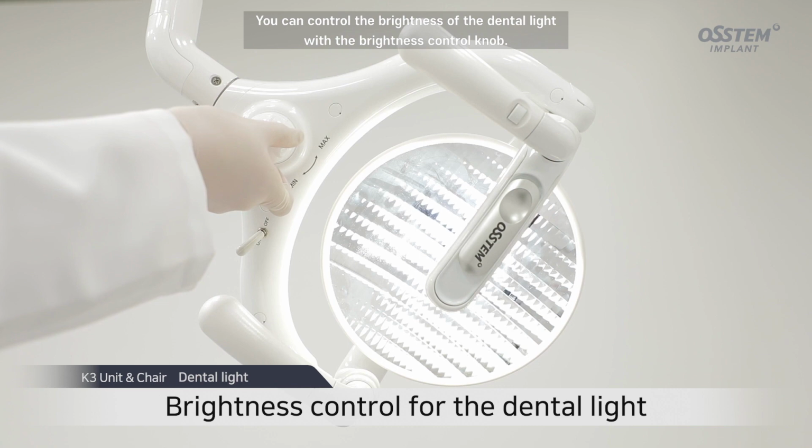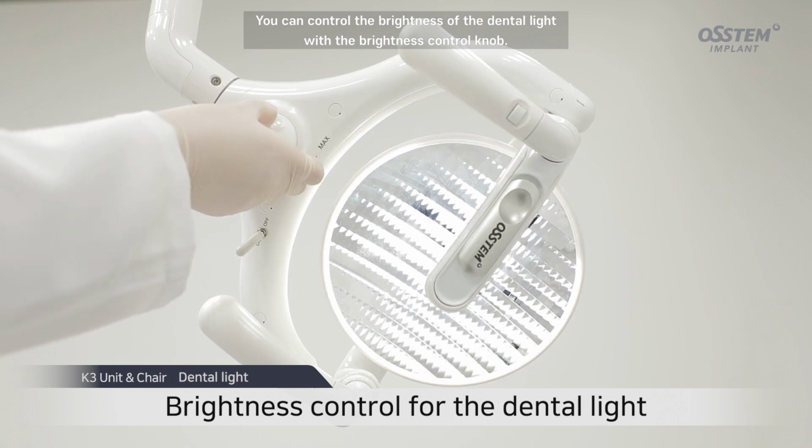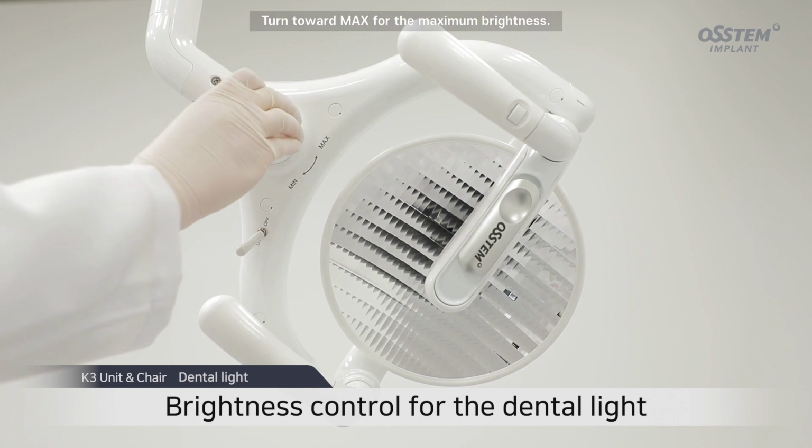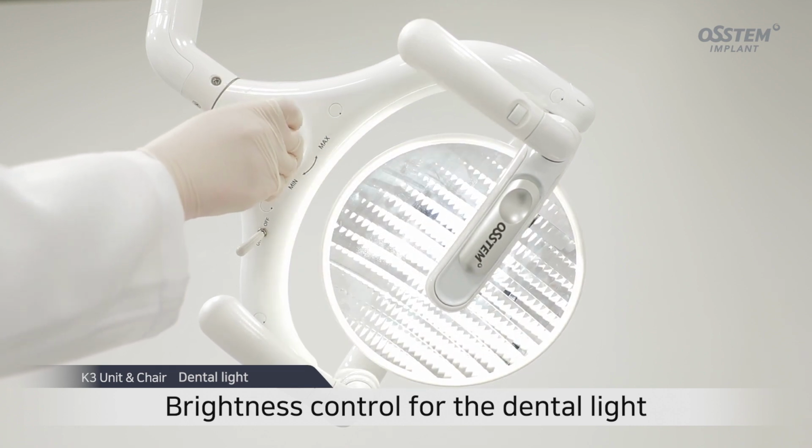You can control the brightness of the dental light with the brightness control knob. Turn toward max for the maximum brightness.